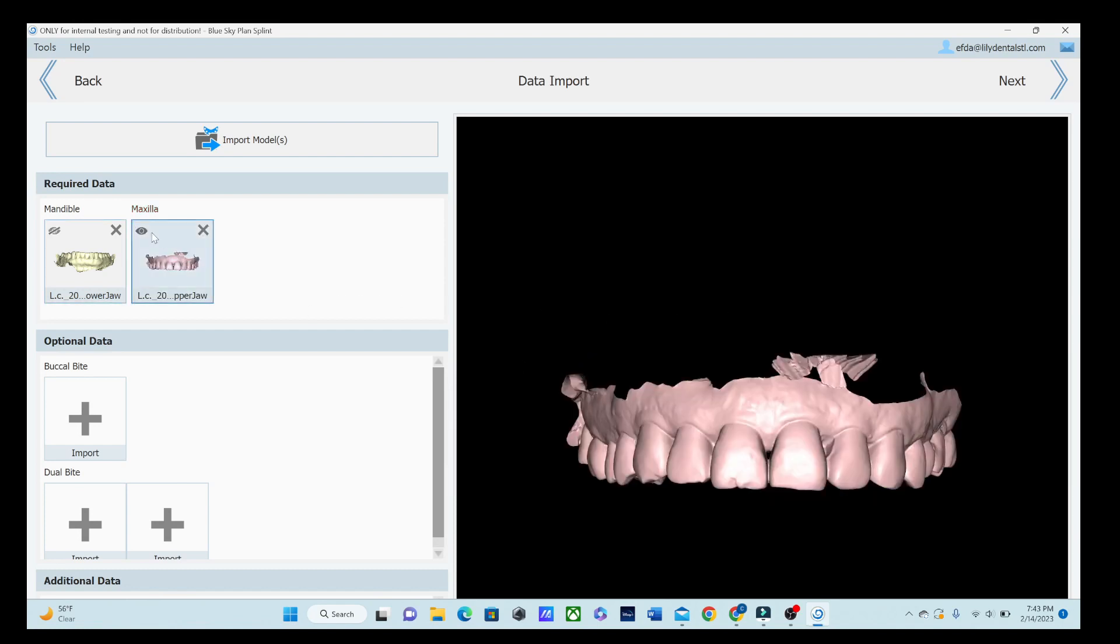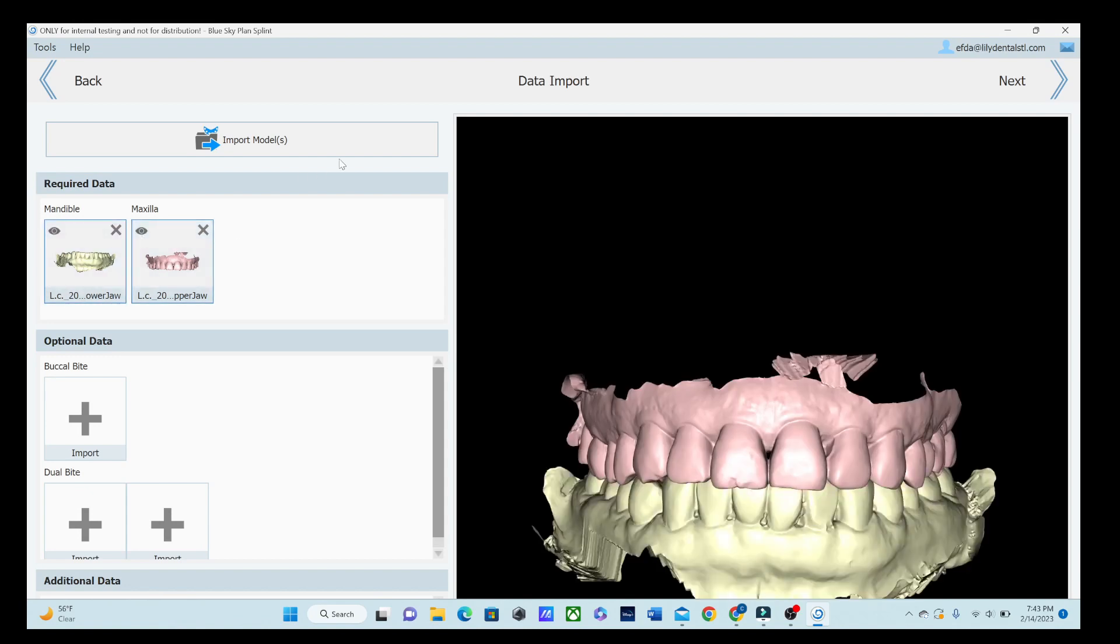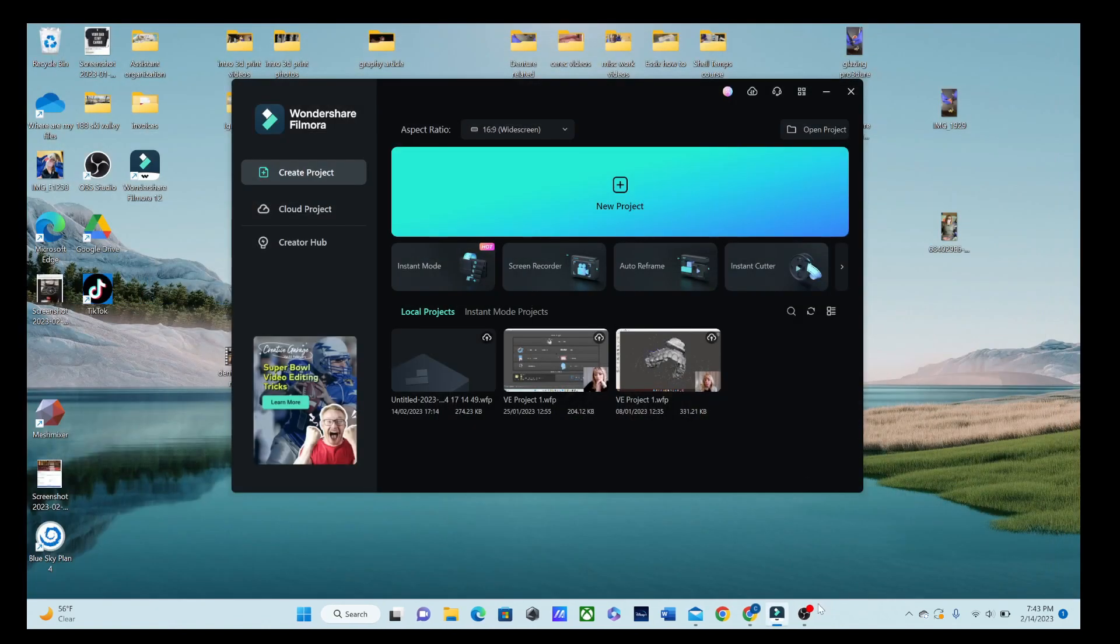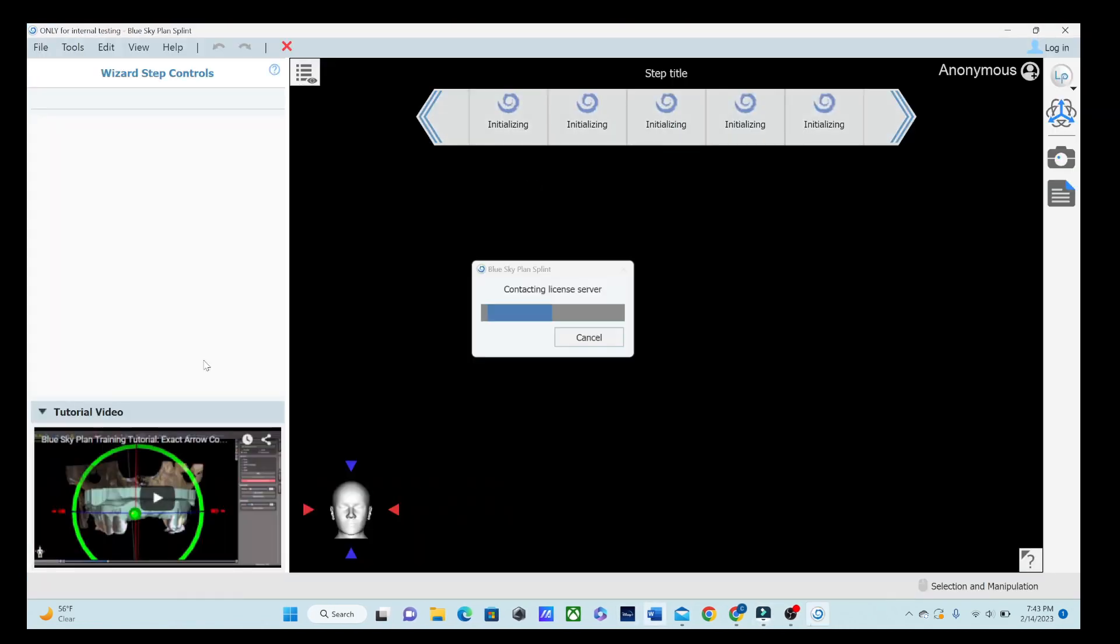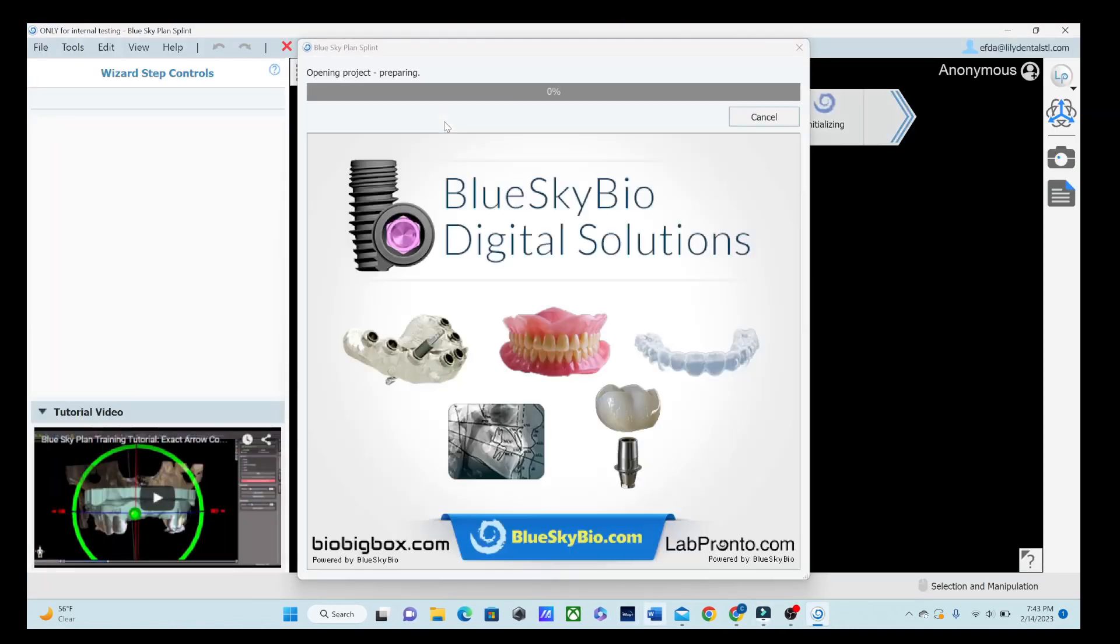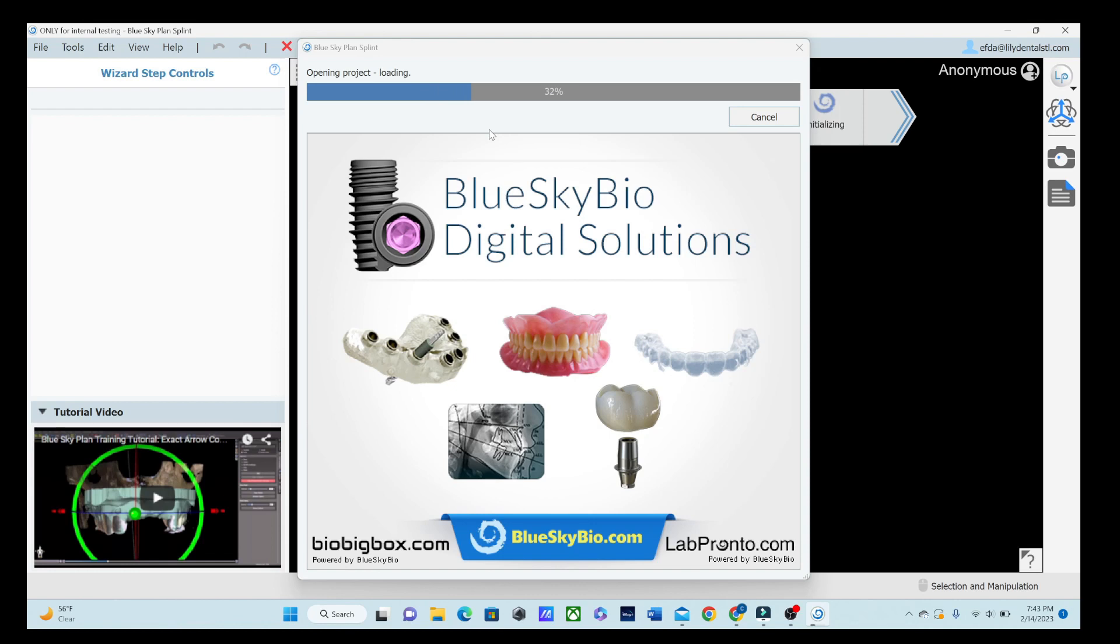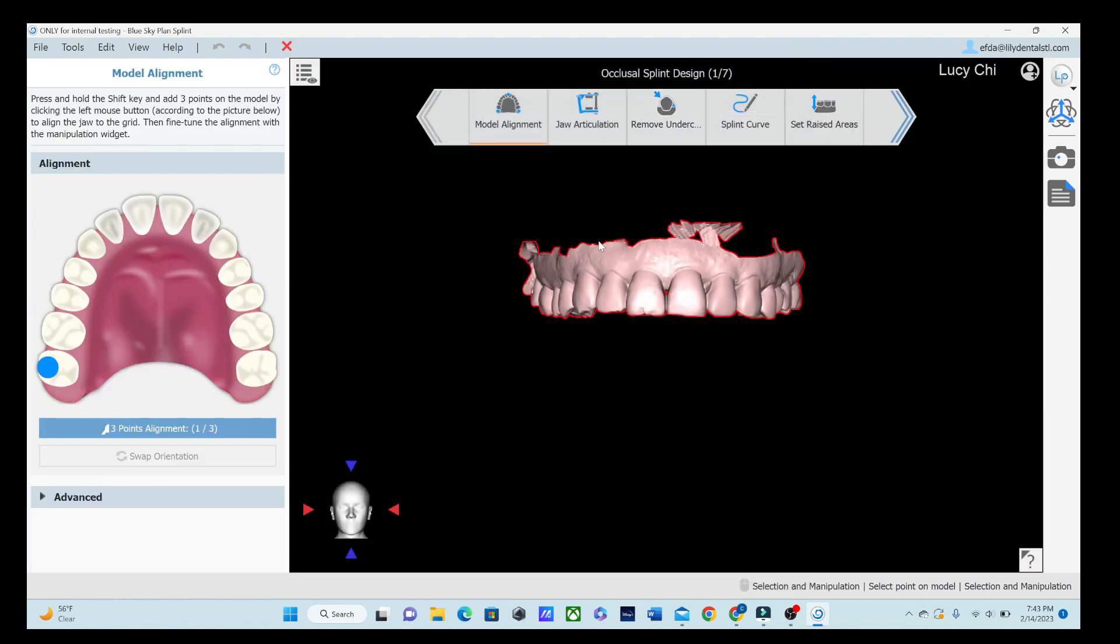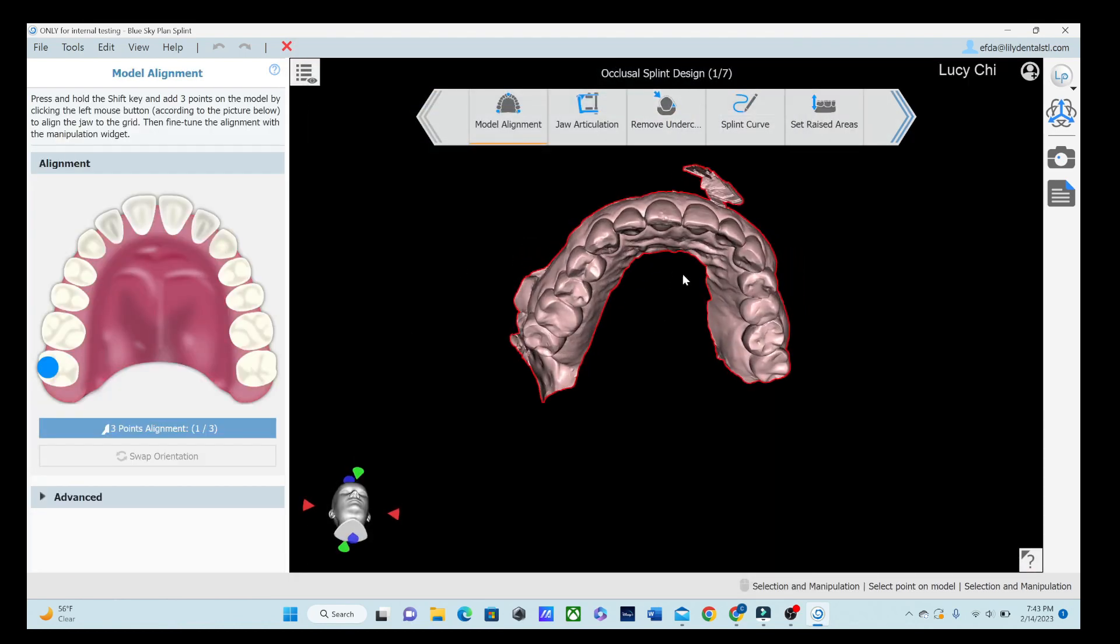I'm going to try to put out some more training videos with all the new stuff. As time goes by, I will be in Chicago next week for the Midwinter Convention. Hopefully meeting a lot of people there and learning some good stuff. So we've got the upper and the lower. You can view them both at the same time. You can import extra stuff, but this is just a basic splint. So we only need upper and lower. And as we know with Prime Scan, it will automatically embed the mesh in the bite, so you don't have to upload a different bite.